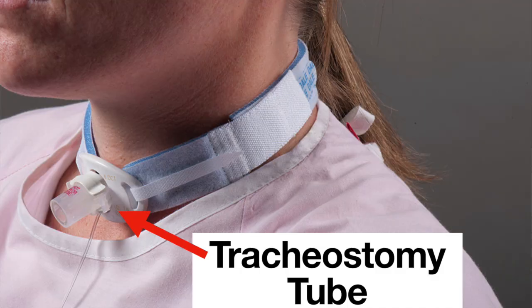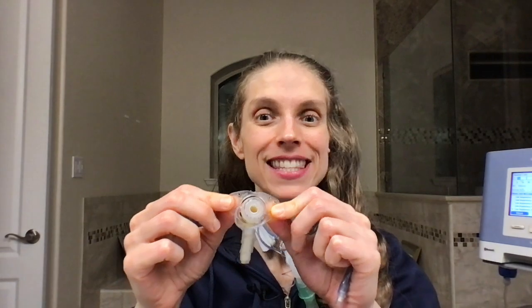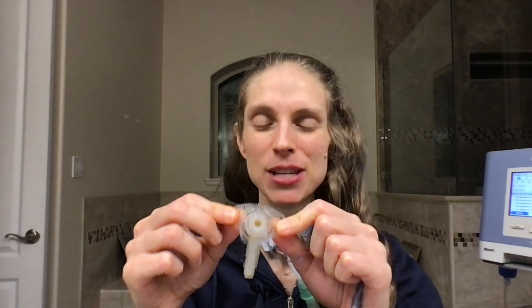Hello, today I'm going to be talking about a tracheostomy tube. First of all, this is a tracheostomy tube. It is used for a number of different reasons. The primary reason is to create an artificial airway.